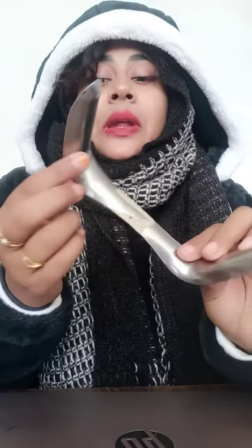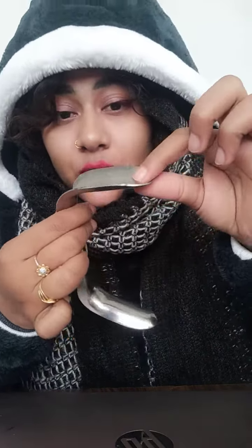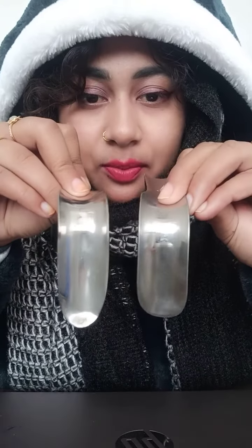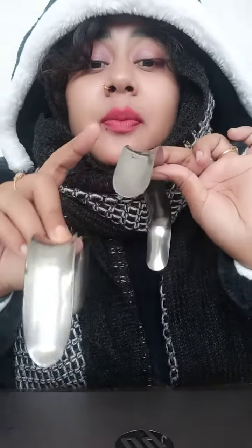It is called Sims because J. Marion Sims, who was a scientist, discovered this instrument. It is called double bladed because it has two blades. Although these two blades are different sizes — one is a little broad and the other is a little narrow. You can clearly see this one is broad and this one is narrow.